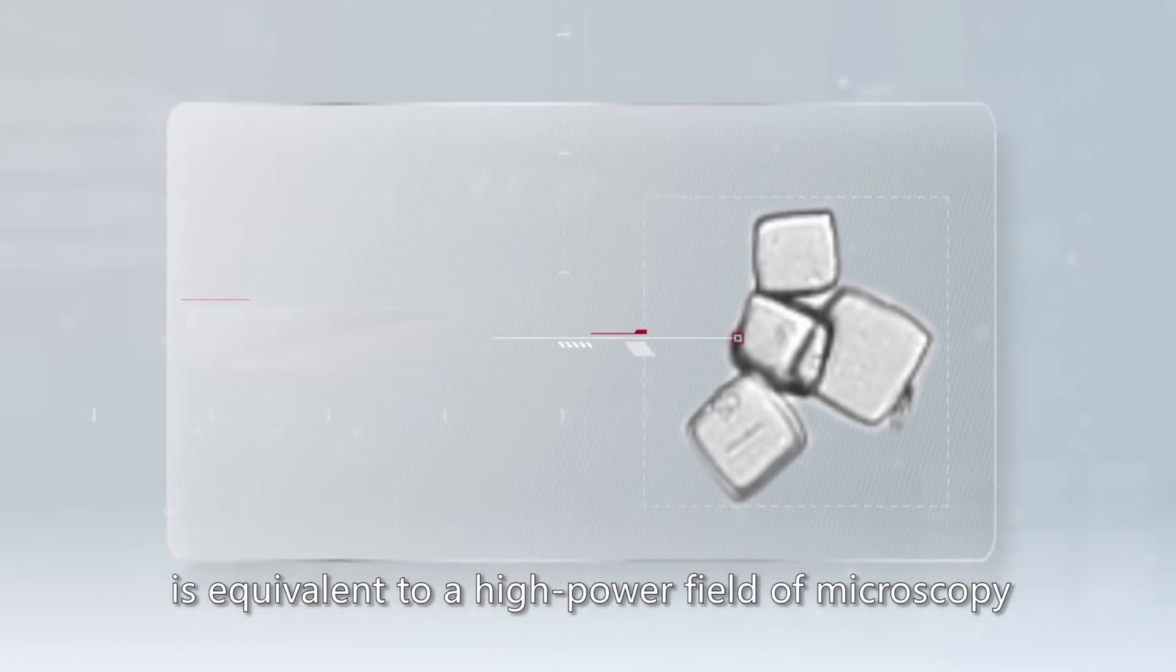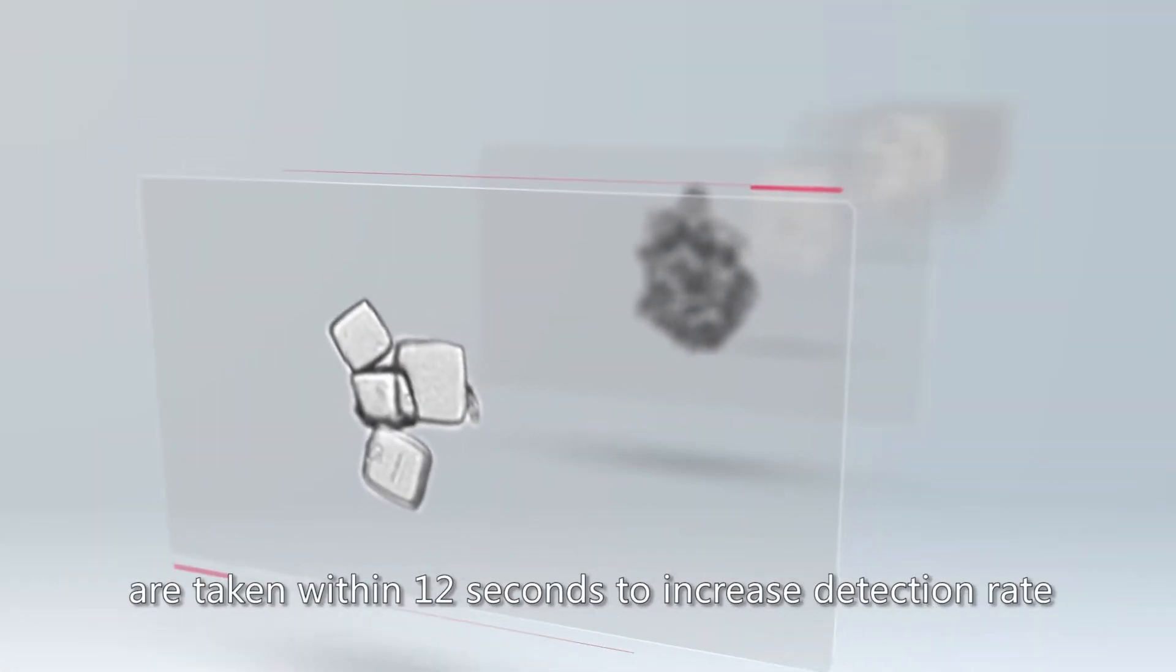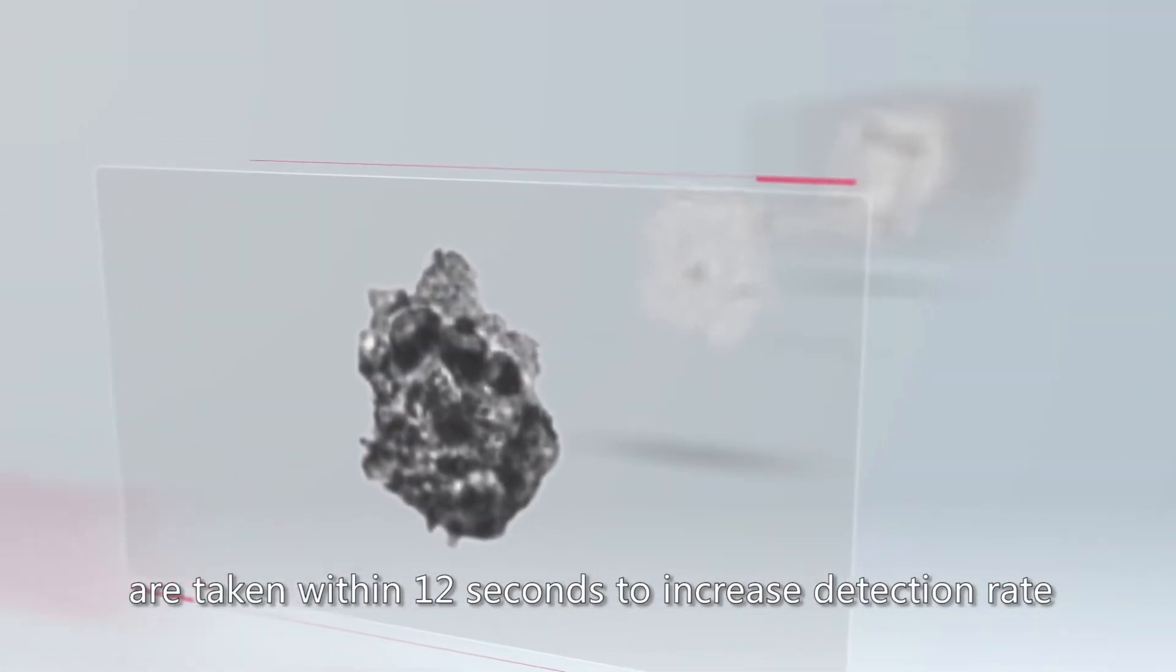The 400 times magnified image is equivalent to a high-power field of microscopy. Up to 2,500 frames of high-resolution images are taken within 12 seconds to increase detection rate.